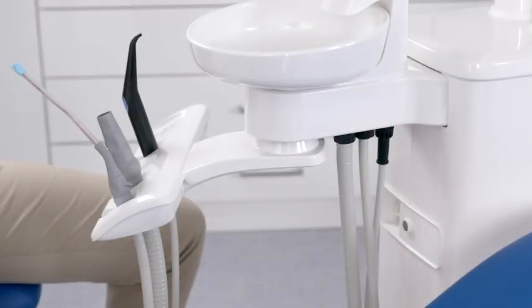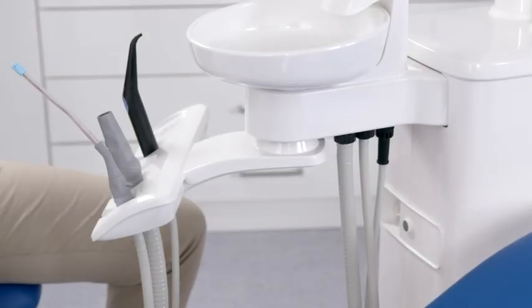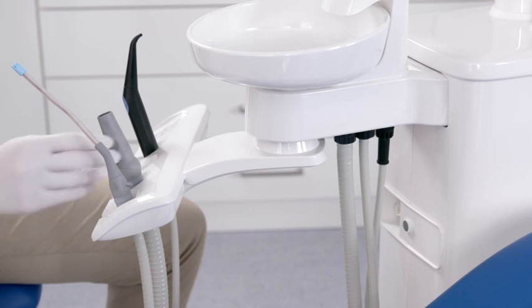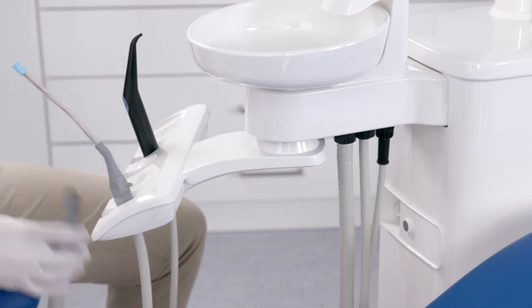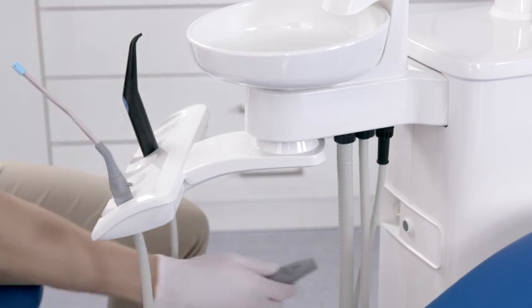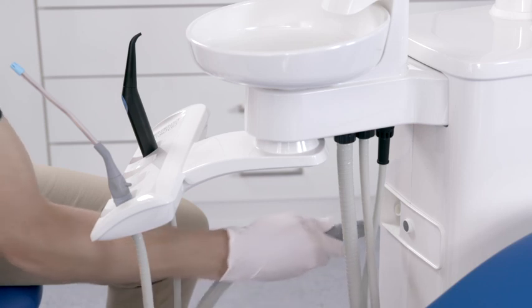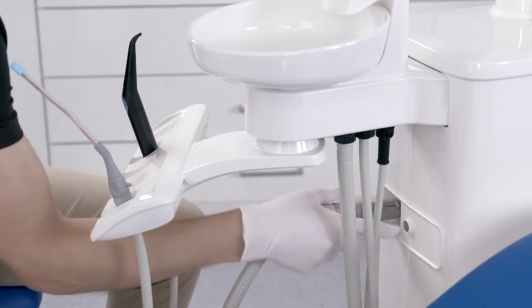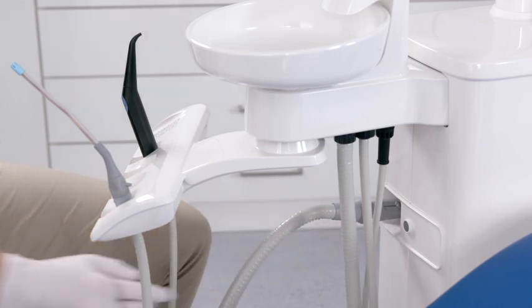Perform suction hose cleaning after every patient. With the suction hose cleaning option, place one suction hose after the other on the adapter in the water unit and press the gray button to start the function.